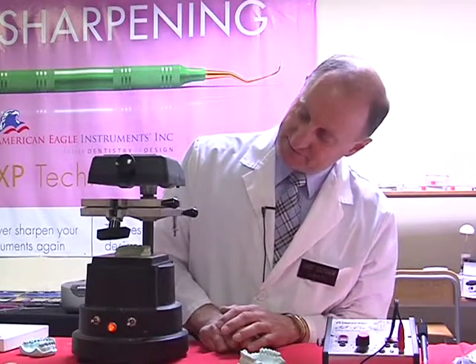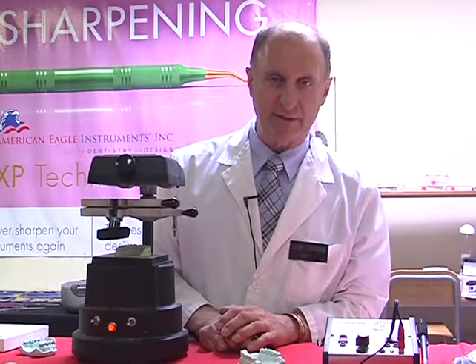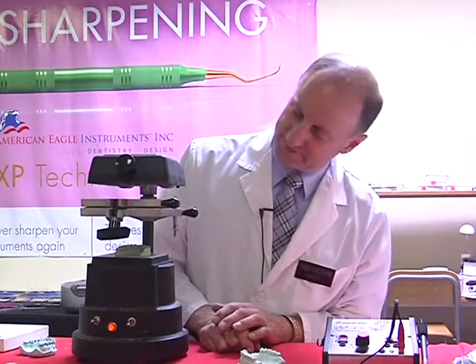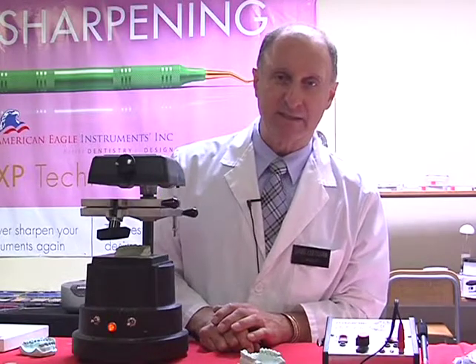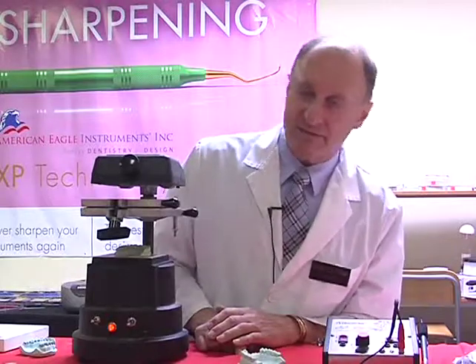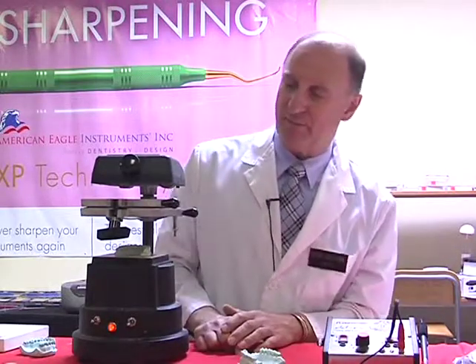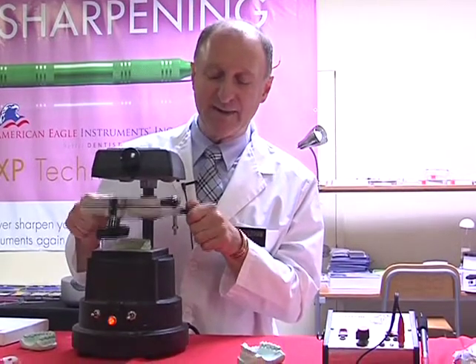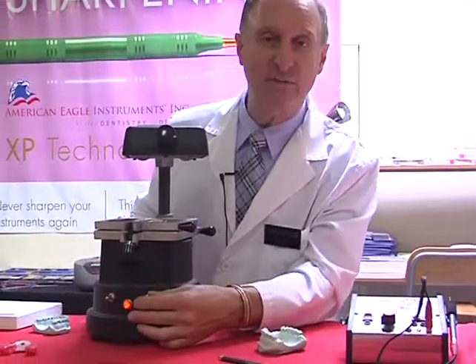Once I've achieved enough droop, and you'll see in just a moment it's starting to get to our perfect point, we'll then turn the system on for vacuuming, and I'll show you how that works. We've now achieved enough time. We've now got a 1/4 of an inch drop. At this point, I'm going to lower this down over the model and turn the vacuum on.